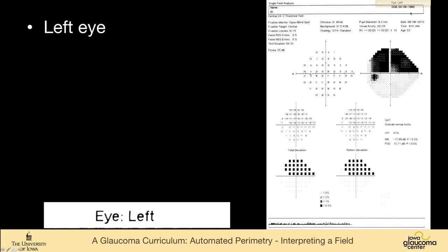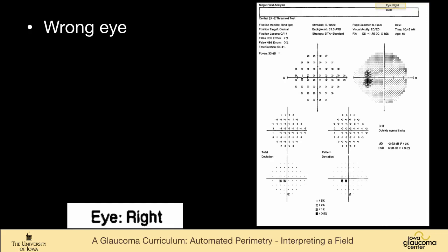Well, let's take a few parts of this field. Upper right, it tells you that this is the left eye, but sometimes a perimetrist does the wrong eye, hopefully rarely. So this says that it's a right eye. The blind spot should be here. And in fact, the blind spot's on the other side. So the wrong eye was tested.